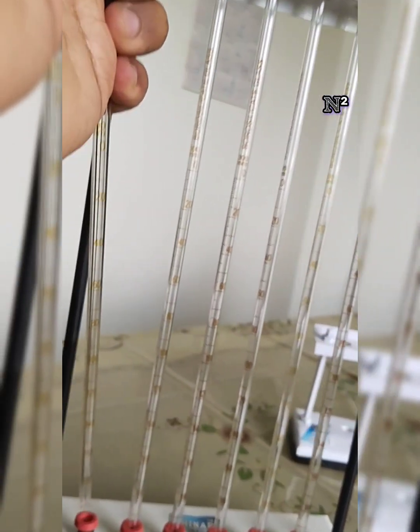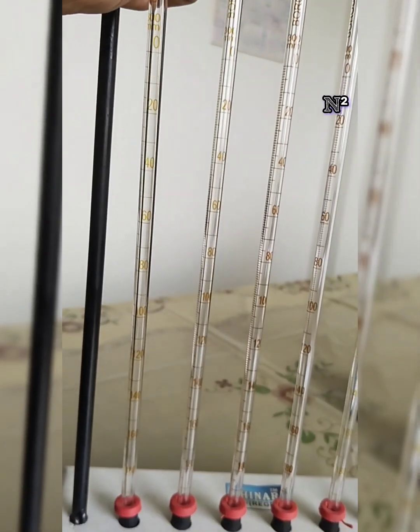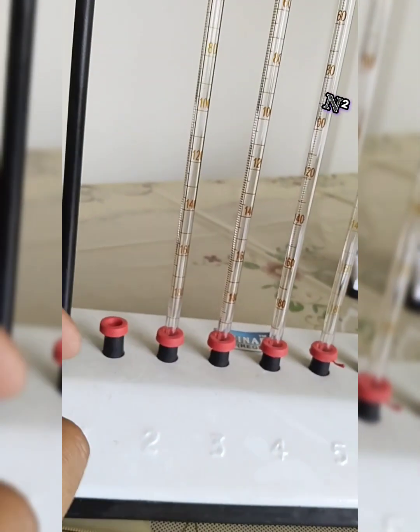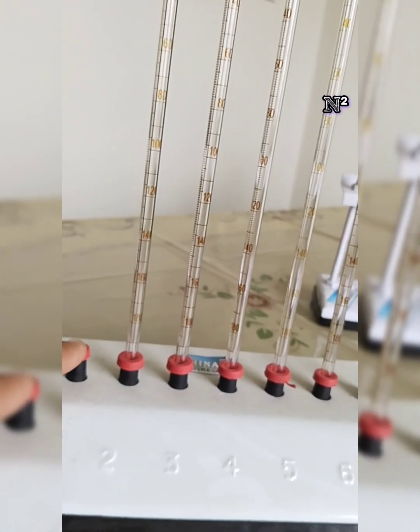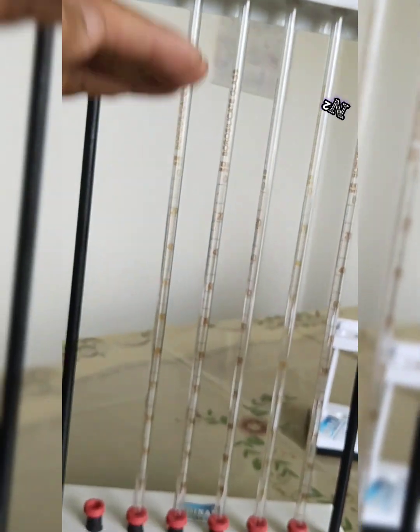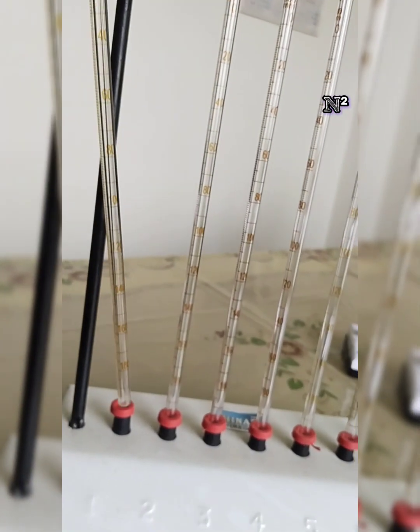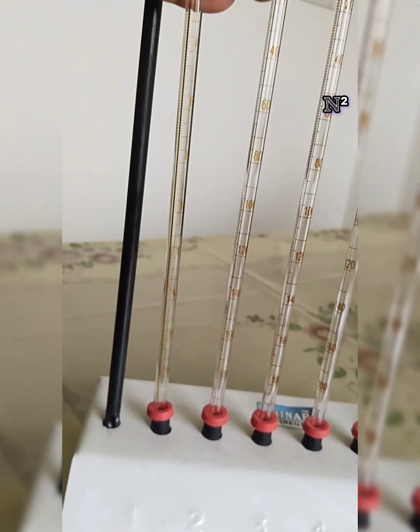Now immediately when you have done this step, you have to keep it in a rack. The rack for the Westergren pipette is the Westergren rack. In this rack, if you look closely, there are some slots given. These slots are called rubber pads, at the bottom part, so this is the base of the Westergren stand. With the base we have two vertical stands, which give support to the rubber pads. The rubber pads help to create an airtight seal of the lower end of the pipette.